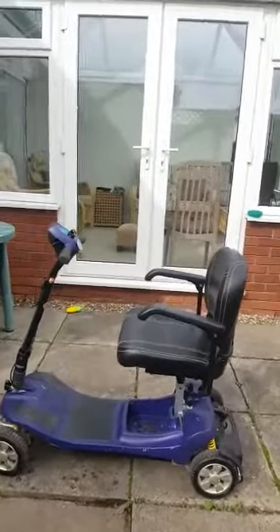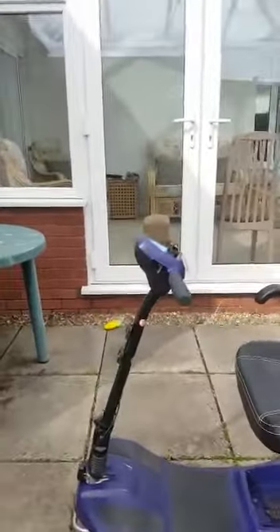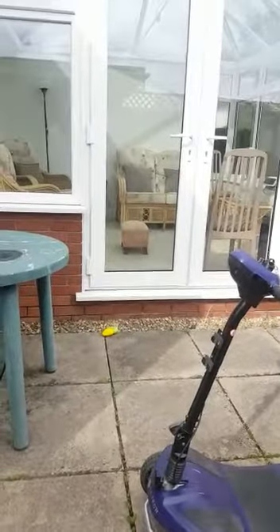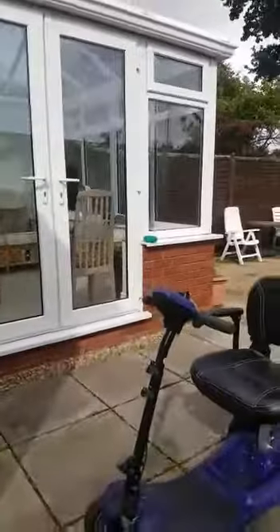And that's my first review of the Li-Tech Neon 15. I'll be giving you a real test review shortly. Thank you very much.